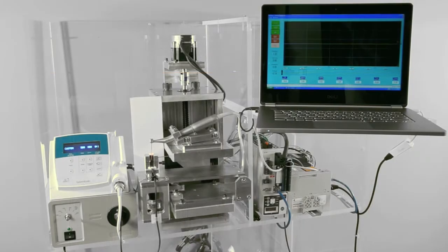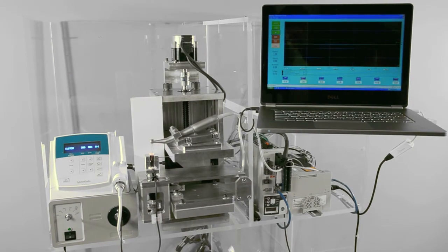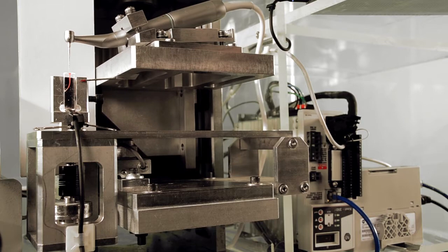These features were inspired while completing over 2,000 computer-controlled evaluations. I began systematically testing endodontic file designs in 1997 after constructing a one-of-a-kind computer-controlled clinical simulator. We've tested thousands of files since that time, and the compiled data was the reason for writing the book Mastering Endodontic Instrumentation. Studying the data brought to light the need to design an entirely new type of file, one based wholly upon evidence, with no constraints of conventional design.